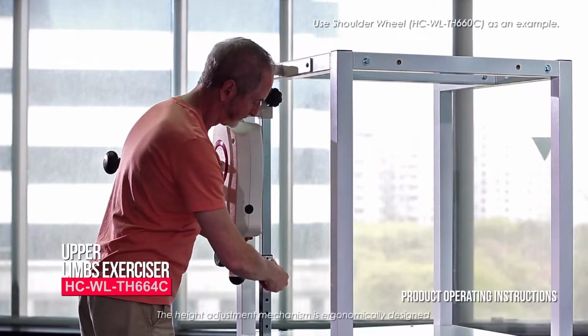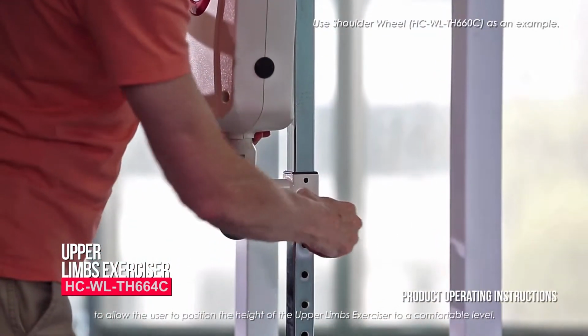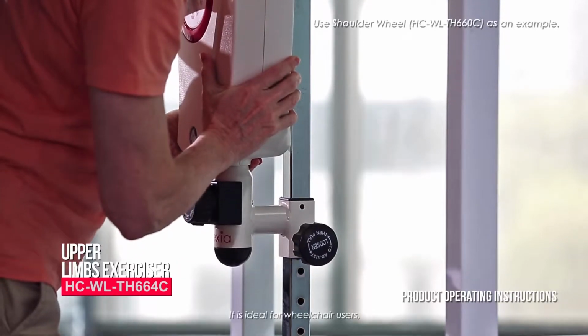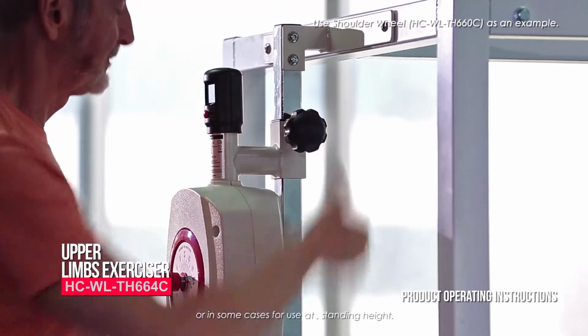The height adjustment mechanism is ergonomically designed to allow the user to position the height of the upper limbs exerciser to a comfortable level. It is ideal for wheelchair users and, in some cases, for use at standing height.